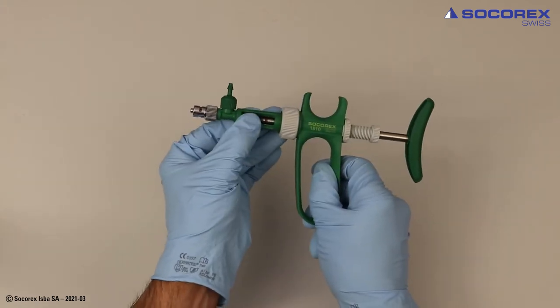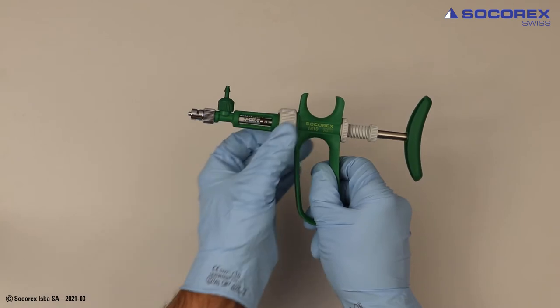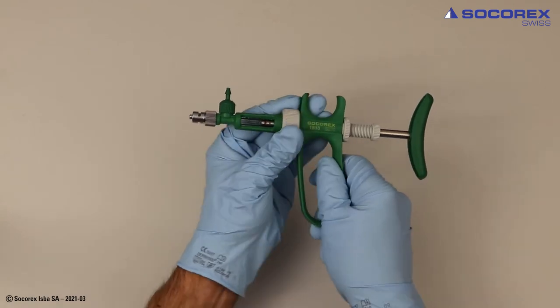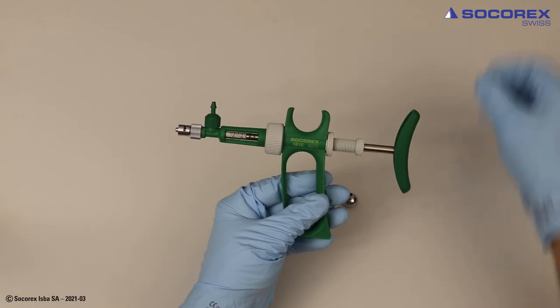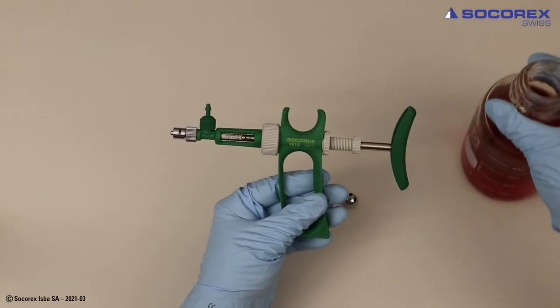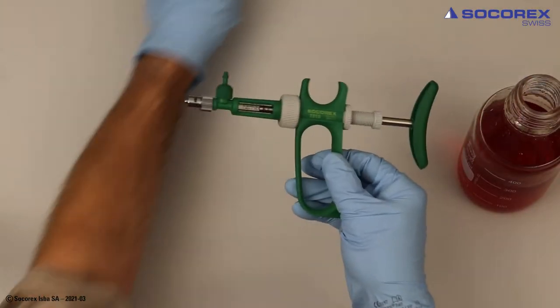Twist glass cylinder for optimal graduation viewing before re-tightening casing nut. Fit silicone tubing to feeding connector.